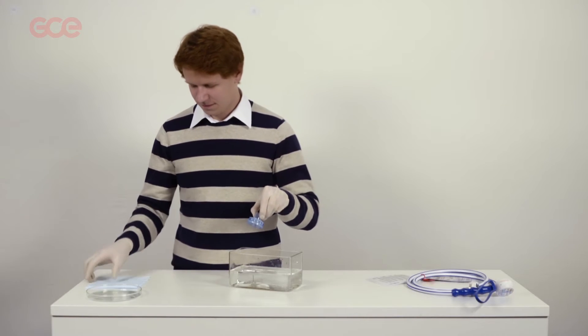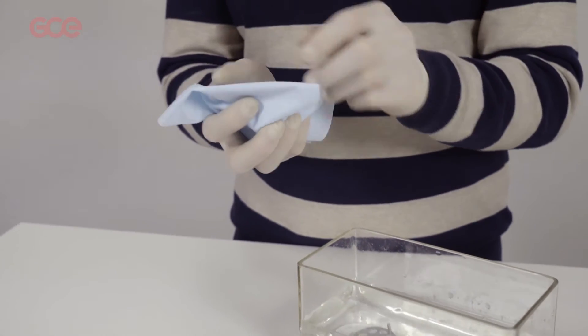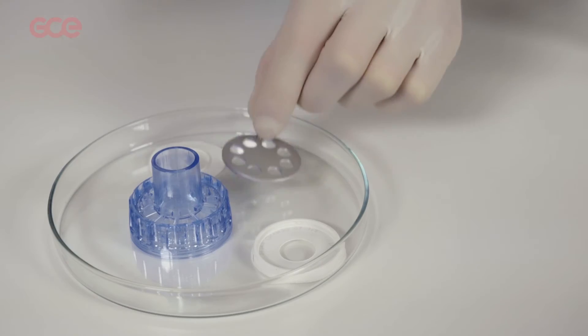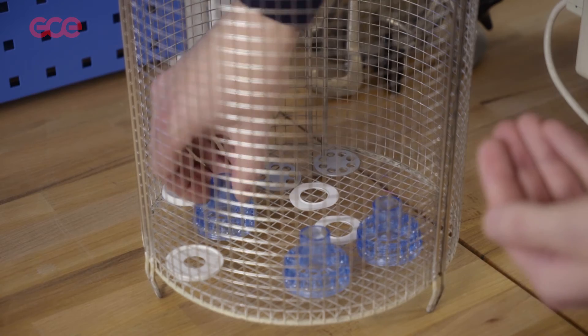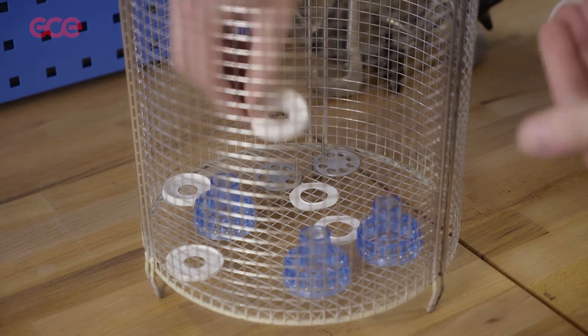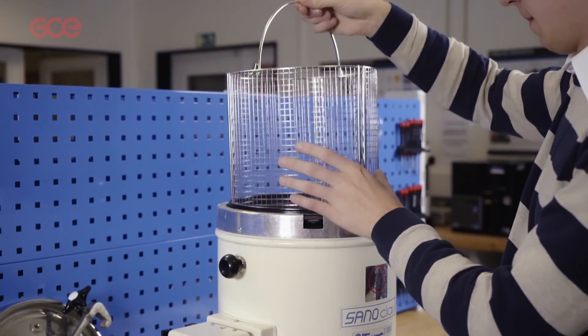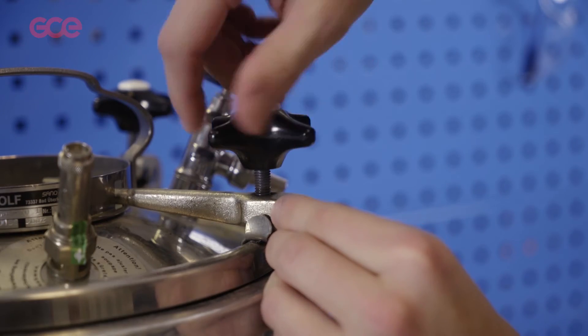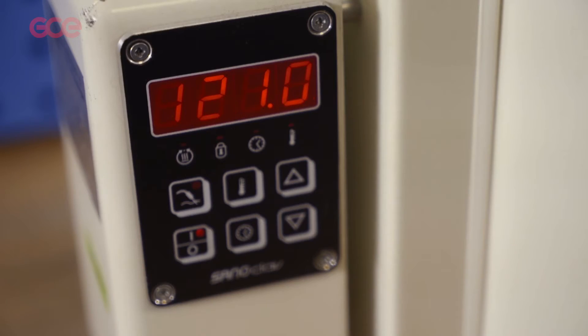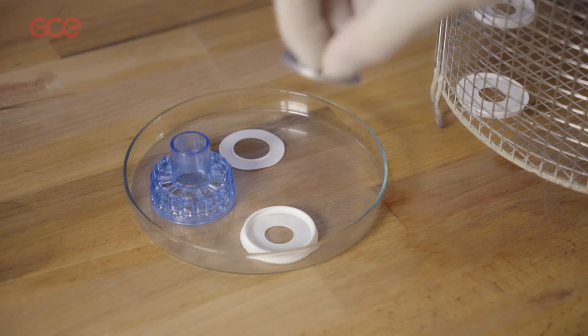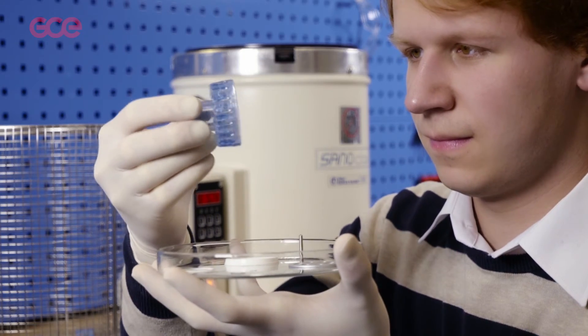Carefully dry the components and use a non-abrasive cloth, or put the parts in an autoclave for 5 minutes at 134 degrees C or for 20 minutes at 121 degrees C. After the cycle is complete, wait until the parts are cool and check for any damage.